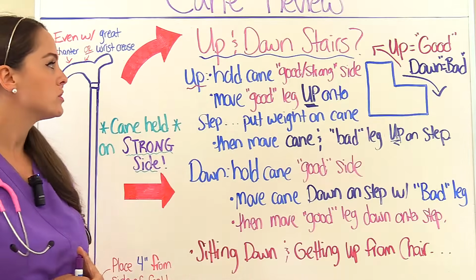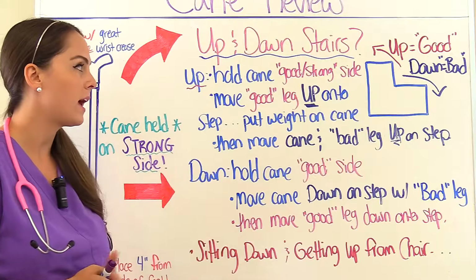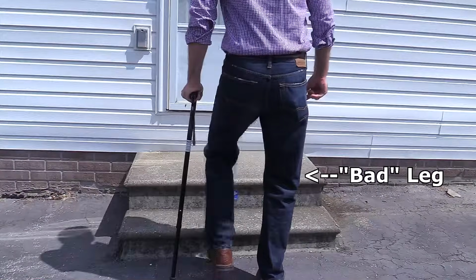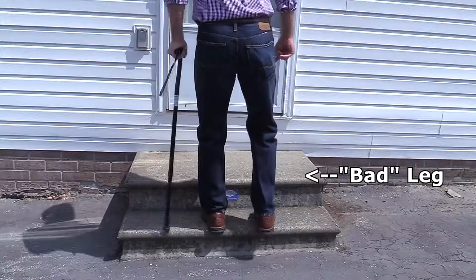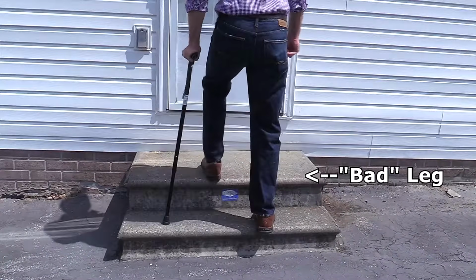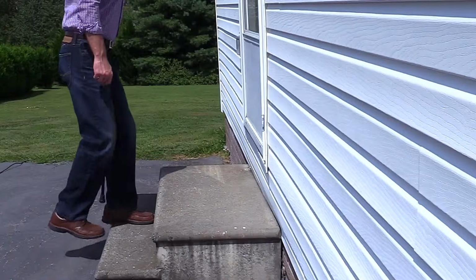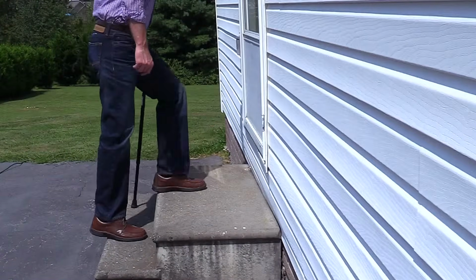Well, what the patient wants to do is hold the cane on that good, strong side. Then they're going to move the good leg up onto the step, and they're going to put weight onto the cane and then move the cane and the bad leg up onto the step.